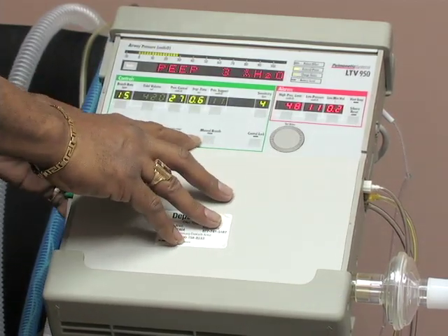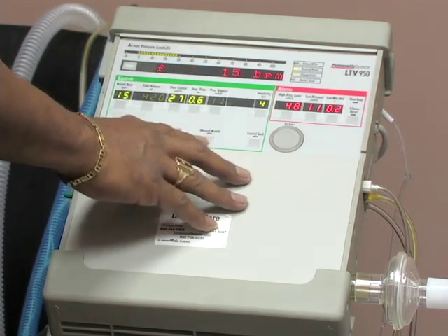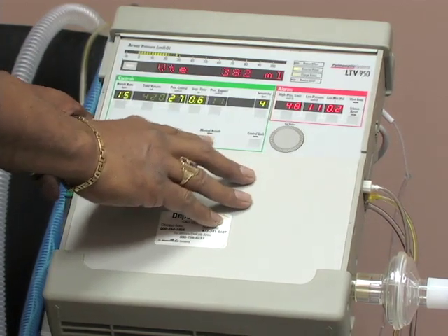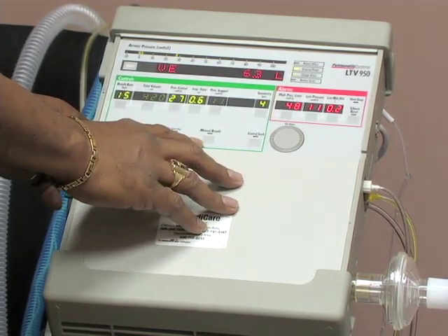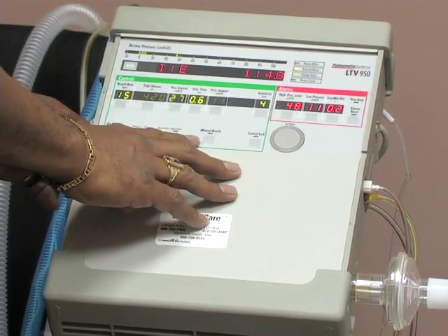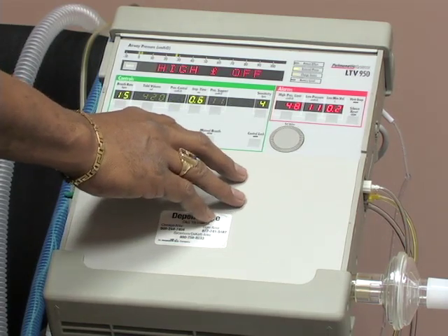This is your manual breath control. This is very useful for simulating an ambu. You can give extra breaths in between the given breaths simply by pushing it and getting an extra breath in. It's very useful prior to and after suctioning to give some extra ventilation.